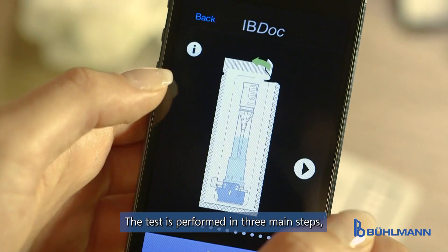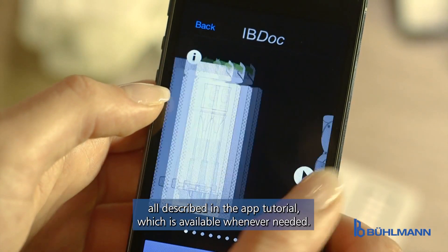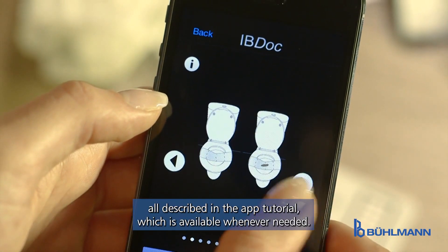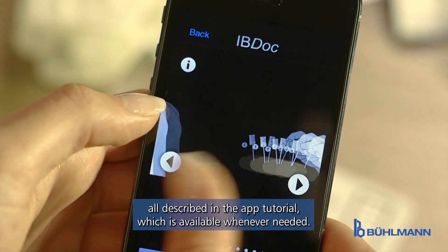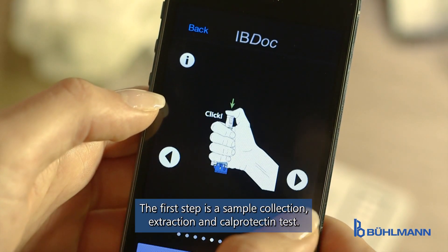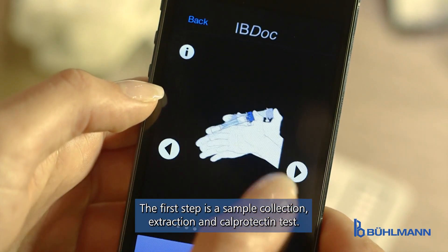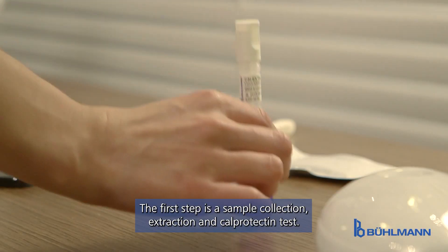The test is performed in three main steps, all described in the app tutorial, which is available whenever needed. The first step is the sample collection, extraction and calprotectin test.